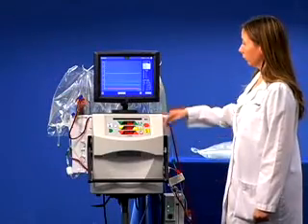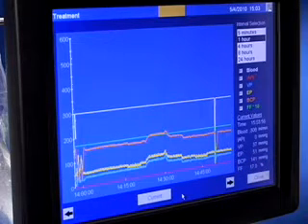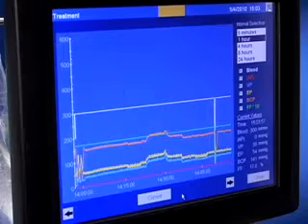Look at the red line. If the access pressure is decreasing or becoming more negative, this indicates the arterial access is clotting.